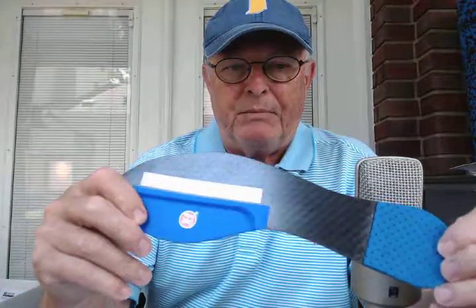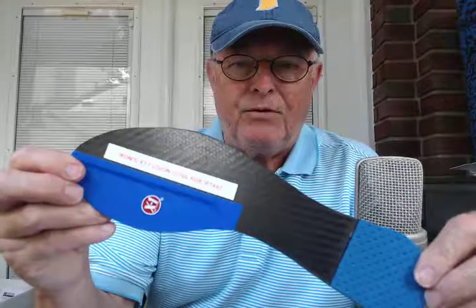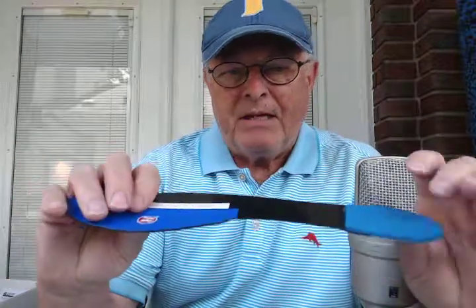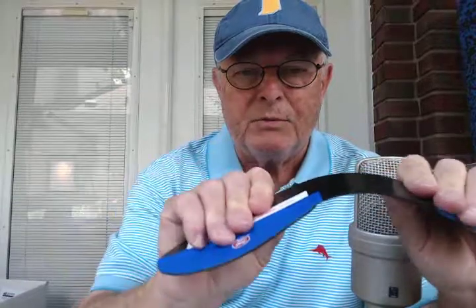So he wants to use something that's rigid on the forefoot but flexible everywhere else — that's what the Fusion X1 blade is. Zone 1 is at the heel or the rear foot — it's flexible, flexible in the mid-foot, so as not to restrict regular motion. But totally rigid in the forefoot — there is no bend.